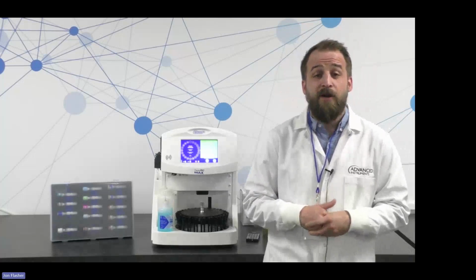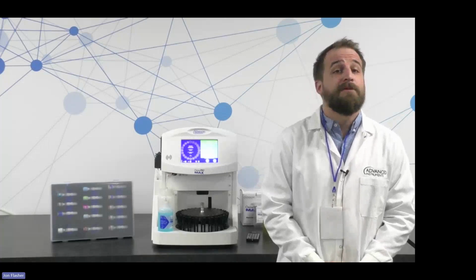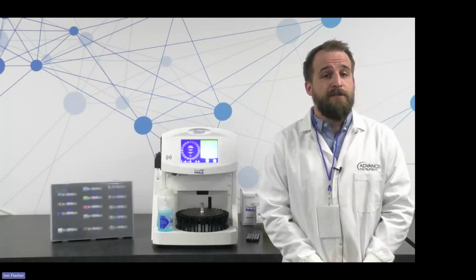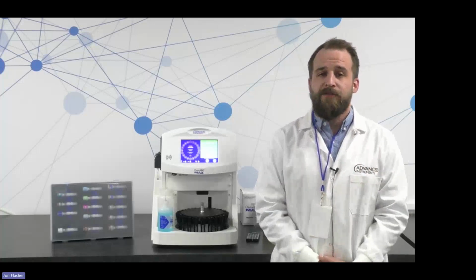Can the microtainers be placed on the sample rack? No, they need to be placed on the top of either a primary sample tube or a glass tube in the rack. So they need to be held in position by something. And they can't be directly placed on the top of the sample rack. It's too wide for the microtainer tubes.